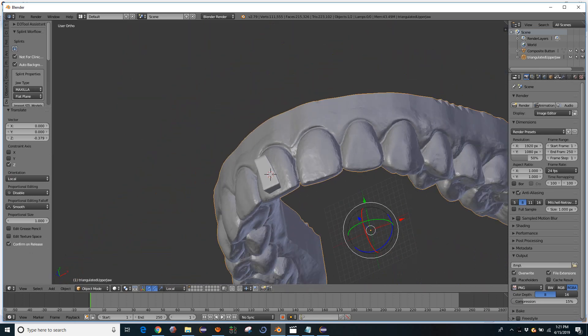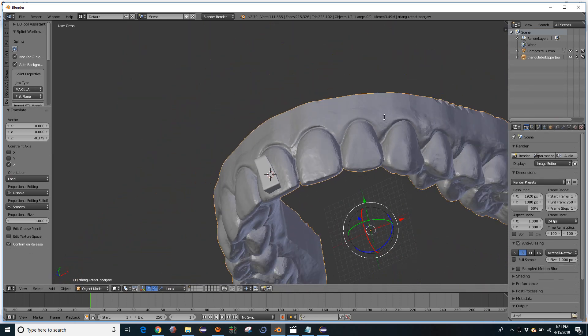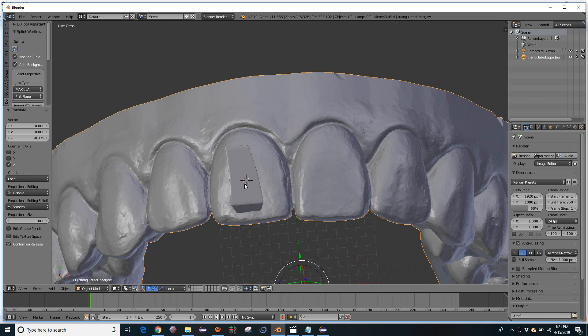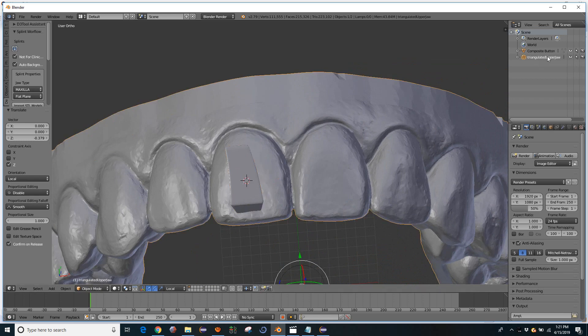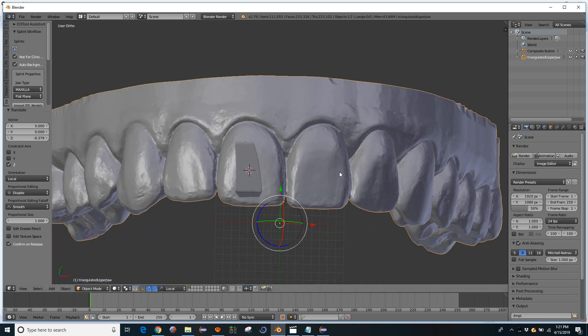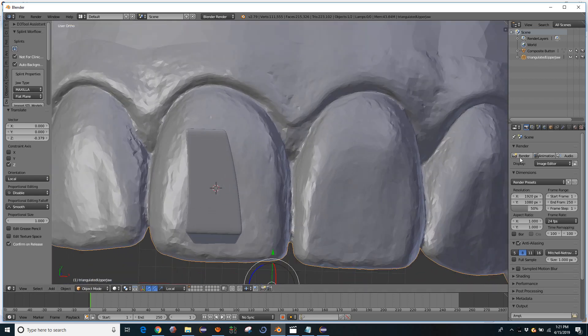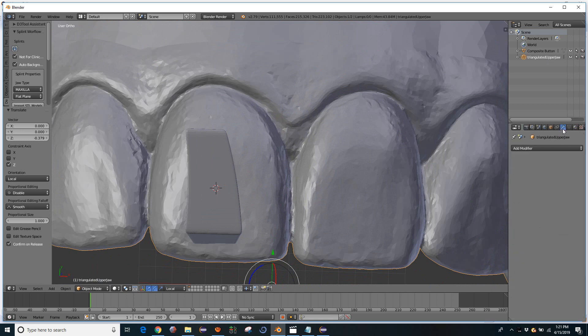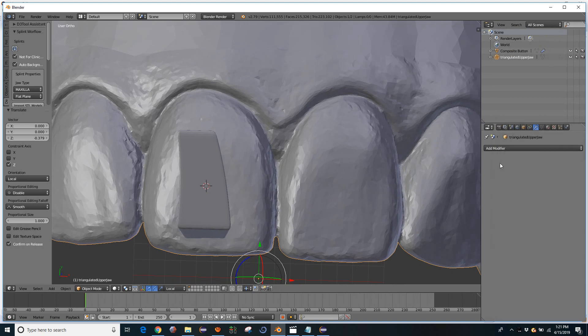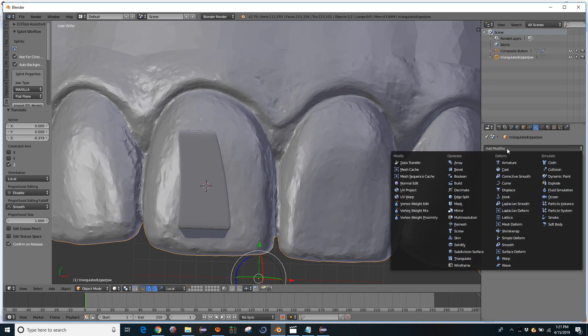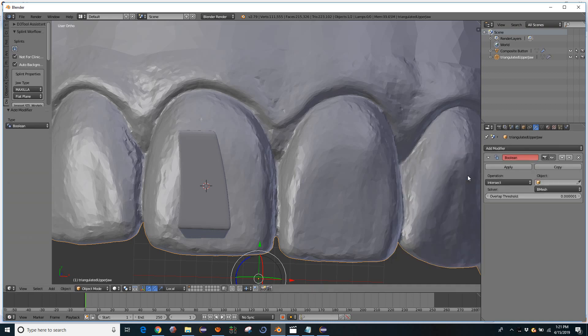Now I'm going to select the object that I want to join this attachment to. So you can left click it there to select it. And in this little blue wrench panel here, this is the modifiers panel. We're going to add a modifier and add a boolean modifier.